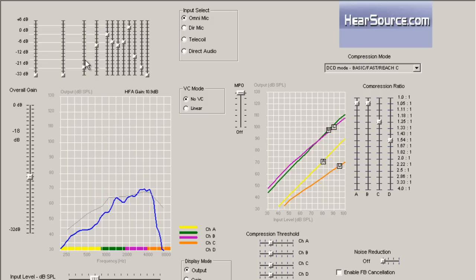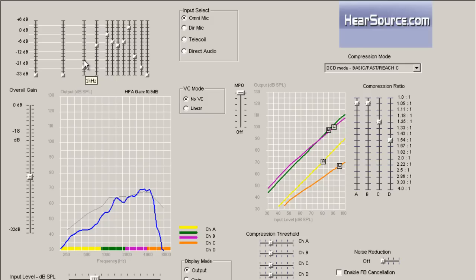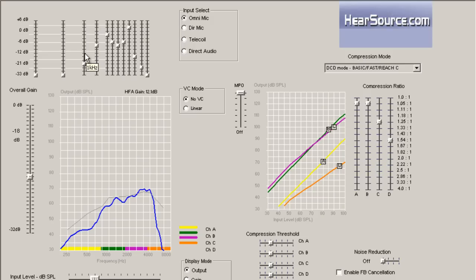Now the different intensity of change between each one of these little hash marks is about 3 decibels of change. So when you're making your adjustments and trying to hone in on just the perfect sound for your hearing aids, 3 decibels is enough change in volume for the human brain to pick up. So sometimes if you can focus in on the problematic frequency, one little change in the output is sometimes all you need to really make a huge difference. It doesn't look like much when you make one little click and load that into your hearing aid, but sometimes it's all you need to make a world of difference.